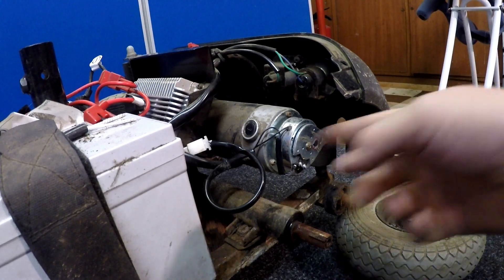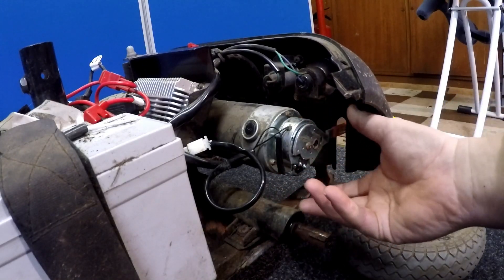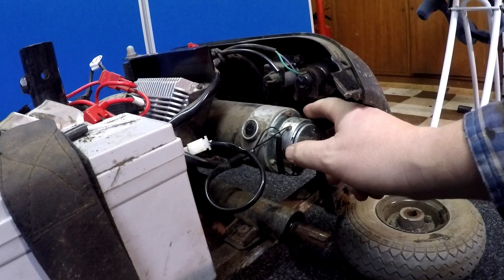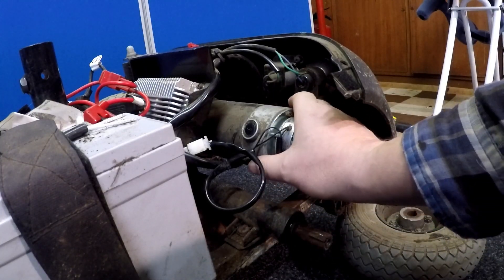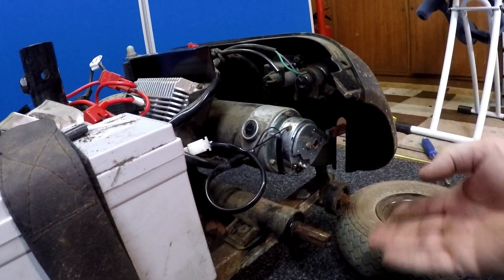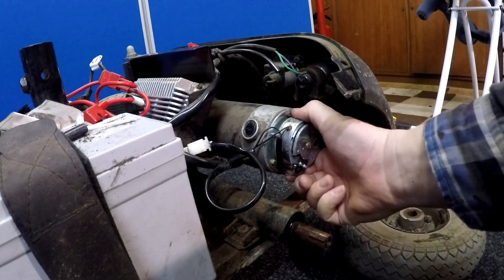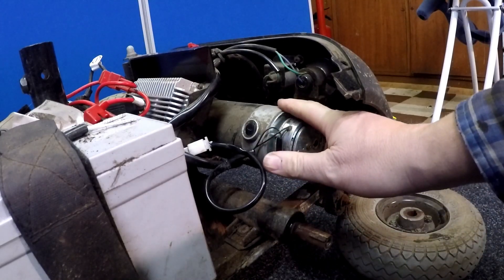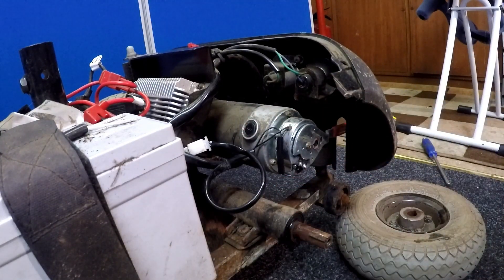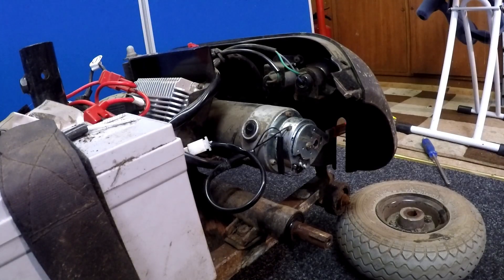The scooter has been driving for half an hour and I'm not happy — the brake is very hot to touch. What's happening is the disc is spinning but the coil is not releasing properly, causing a lot of heat transfer to the motor. Because the motor has to work harder, it's drawing more current from the batteries, reducing mileage and risking damage to the motor internals including the aluminium housing and brush units. So we're going to replace the electric brake.